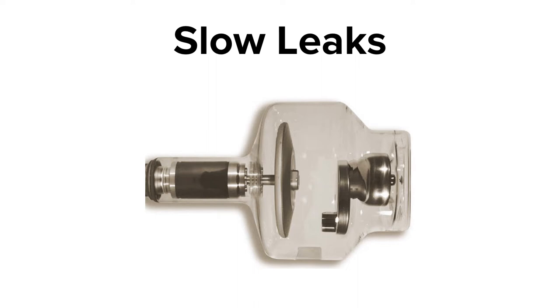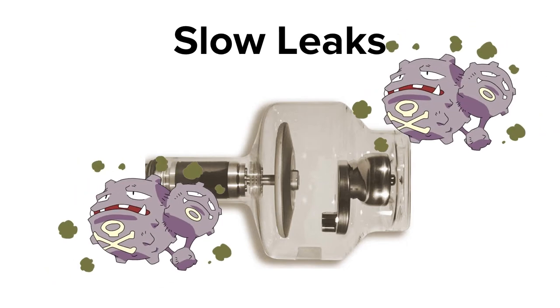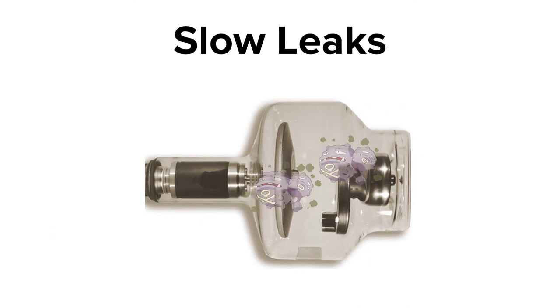If the x-ray tube enclosure is compromised, such as a sealing becoming fatigued and breaking down due to high heat, then that vacuum seal will break, allowing gas to come into the x-ray tube.